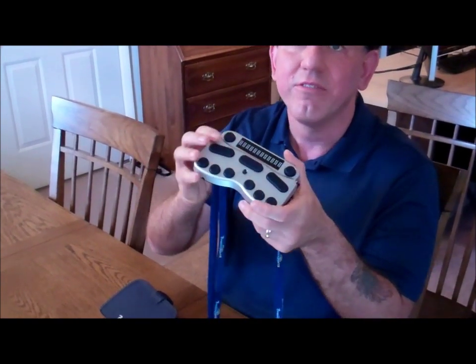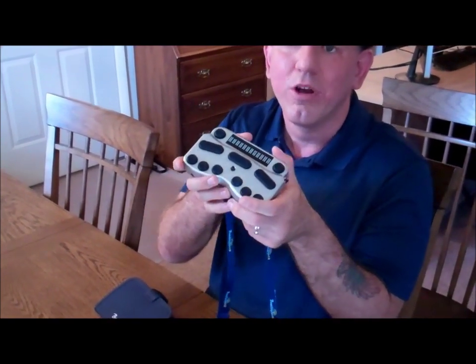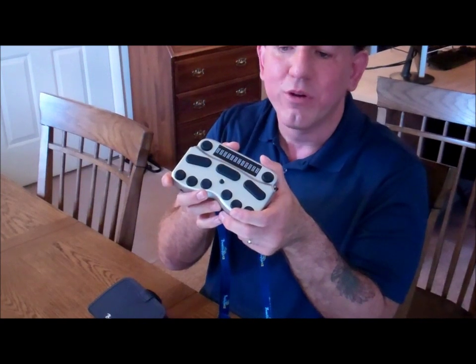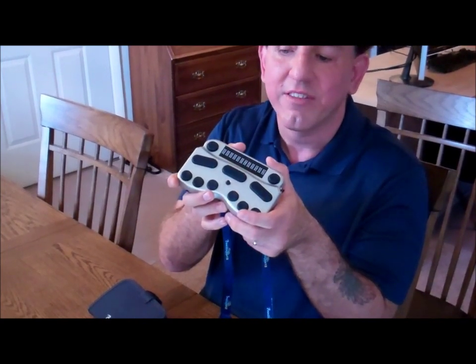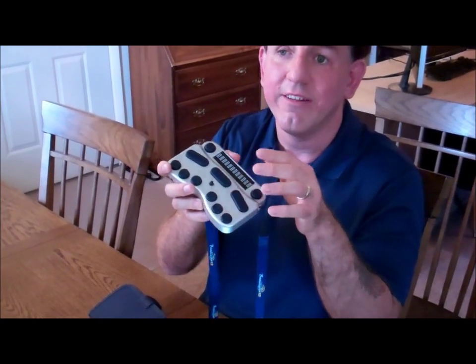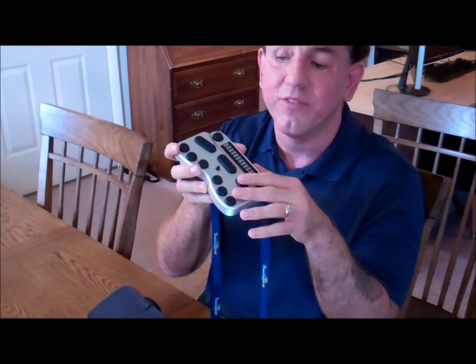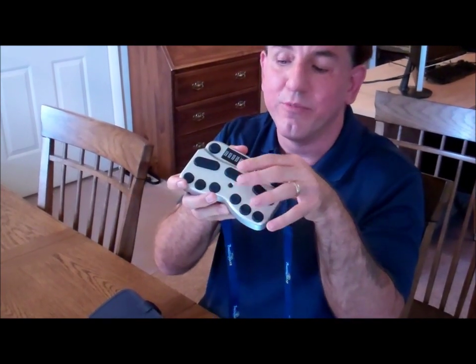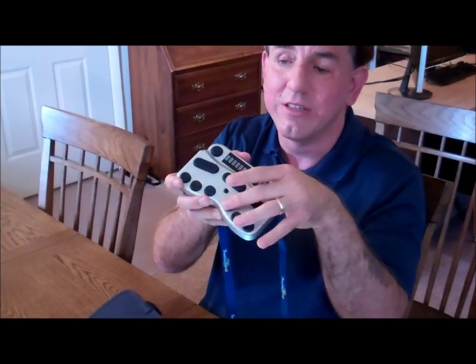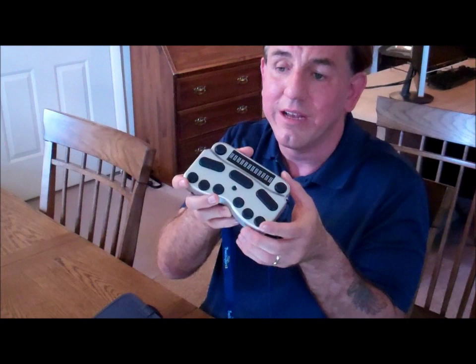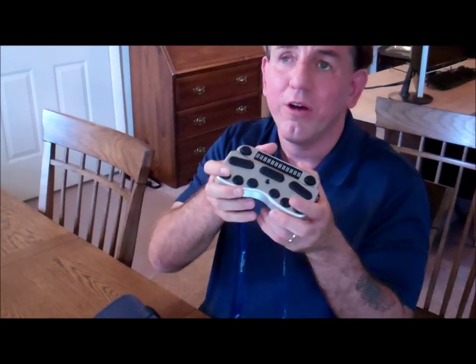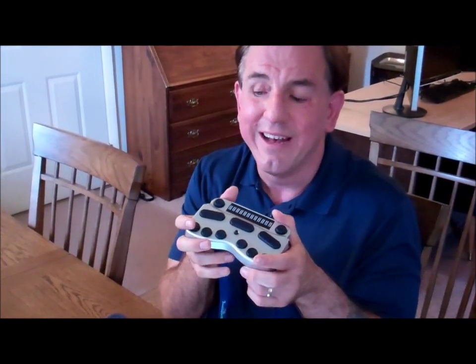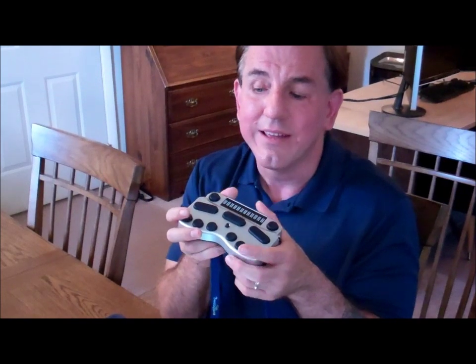Braille Pen 12 is the only Braille display that's currently under $1,000. It's a 12-cell input-output device with a joystick in the middle between dots 1 and 4 for those of you who read and write Braille. Braille Pen 12 is also the only Braille device right now that can easily fit in your pocket.